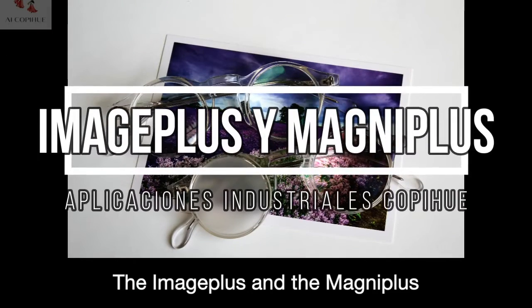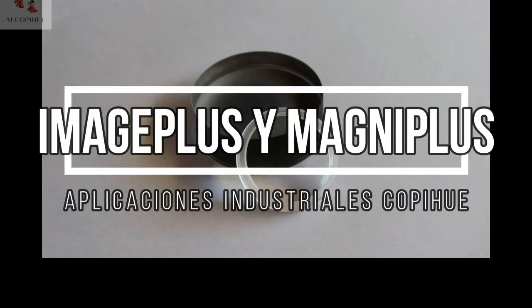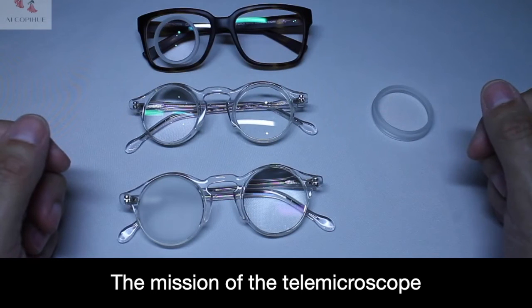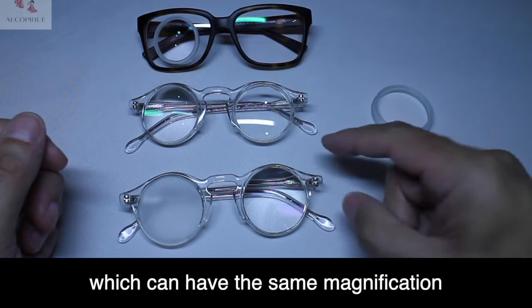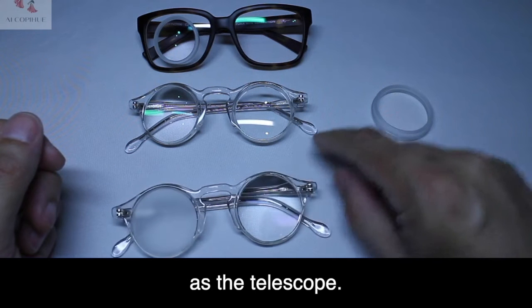The ImagePlus and MagniPlus telemicroscope function is carried out by the 38mm ImagePlus glasses, which can have the same magnification as the telescope.